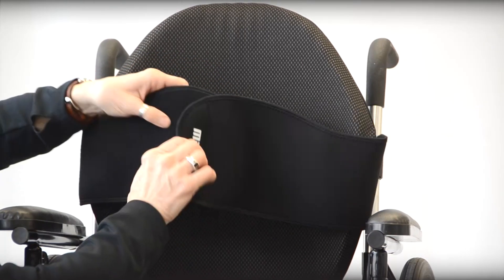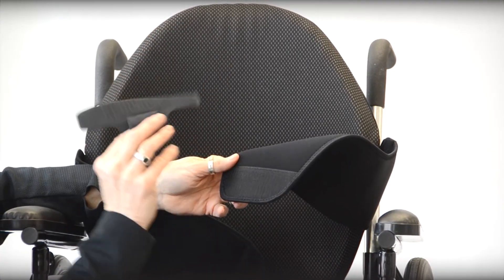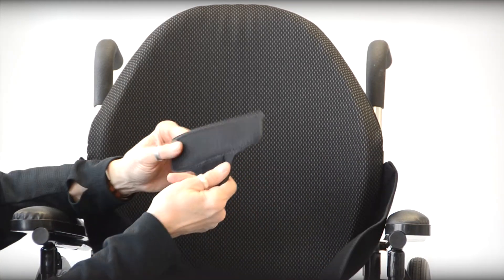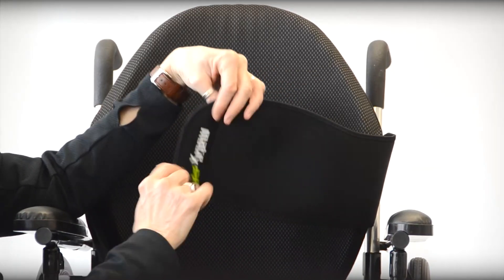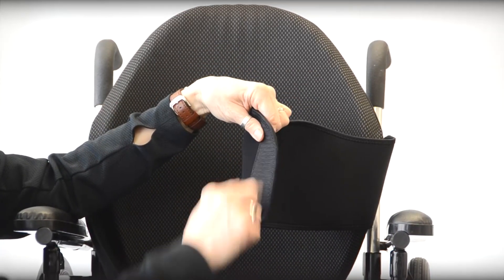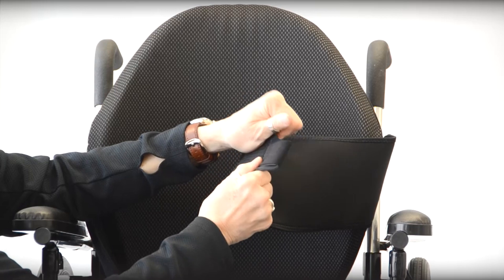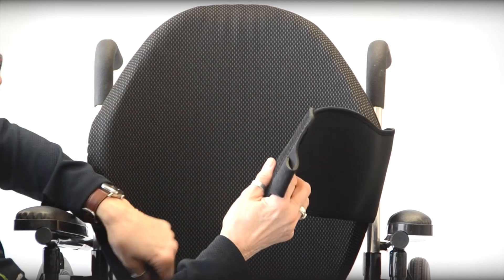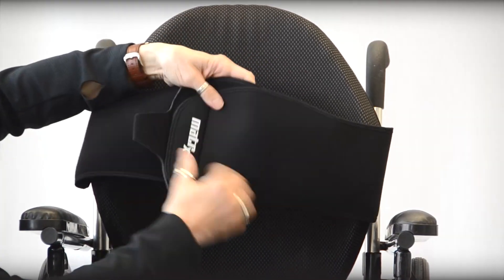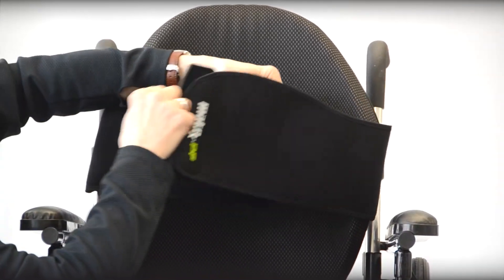If you want to use the quad release tab, it's going to be added on — you'll see velcro loop on it. I'm going to open it up and use the distal aspect right underneath the logo, which is a hook attachment point, and put the fuzzy aspect of my tab on that. Now I've got a hook attachment on this side of the tab, and it works with the same functionality but gives you something a little bit easier to get a hold of to open and close it.